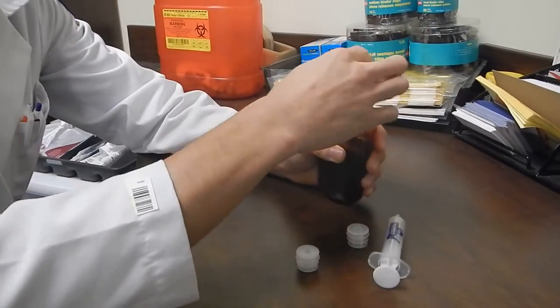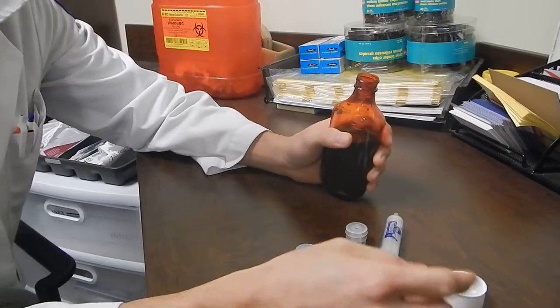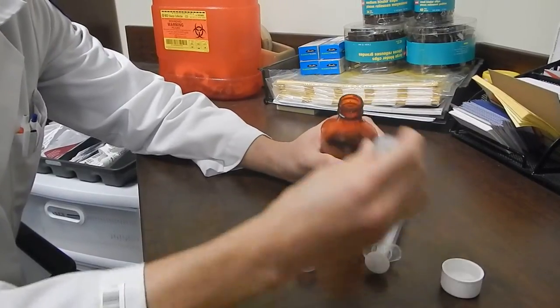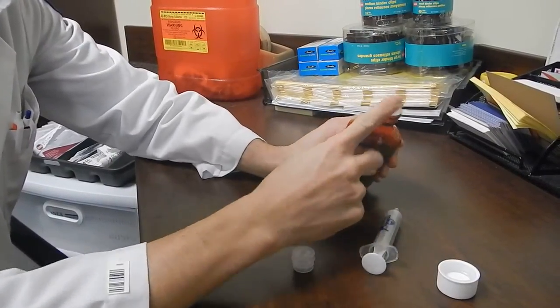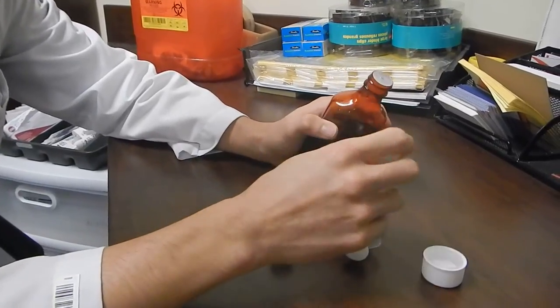So to use these devices, you simply unscrew the cap. With the cap off, you can just push this all the way in until it's flush with the top of the bottle.